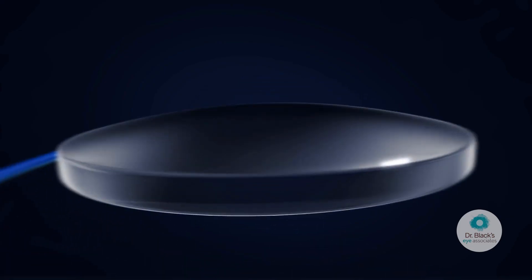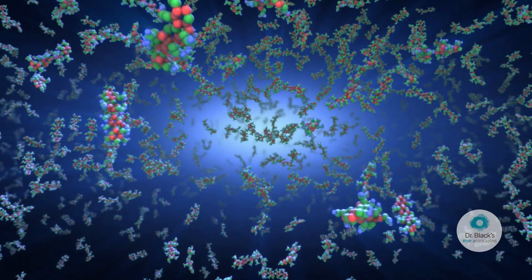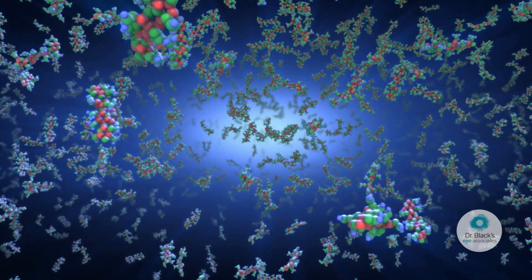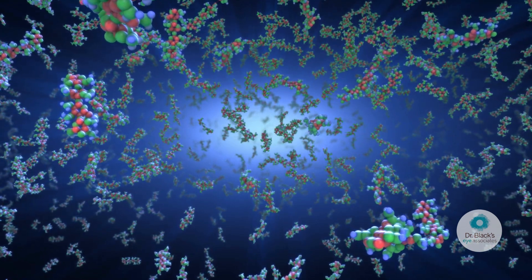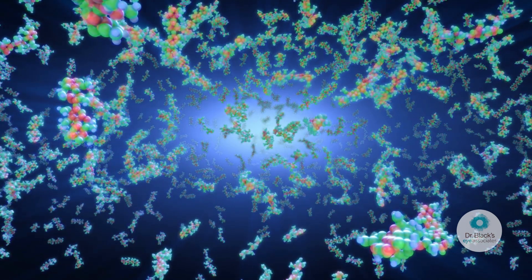Adjustability of the lens is based on the principles of photochemistry and diffusion. The light-adjustable lens incorporates proprietary silicone photoreactive additives called macromers, which are distributed throughout the lens.